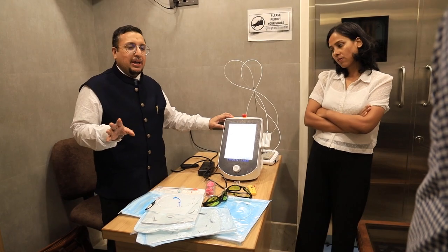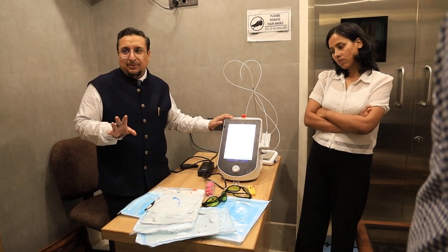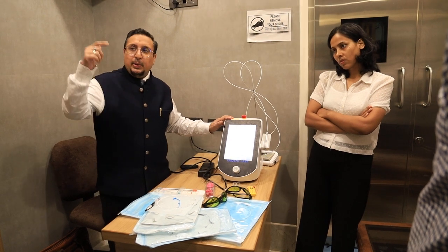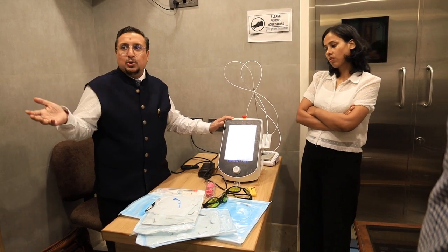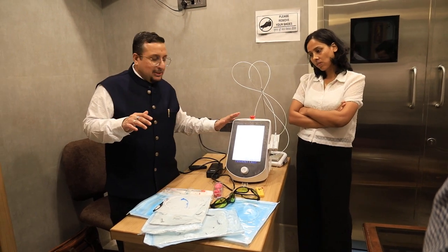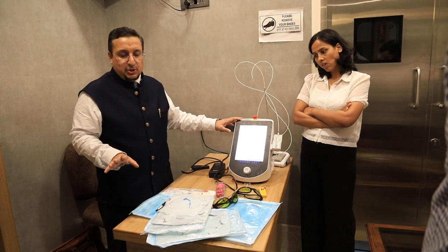So if you are planning to buy, I suggest you buy 1470. Don't buy 980 because now 1920 has also come and more machines have come beyond that, but they are not much in use now.